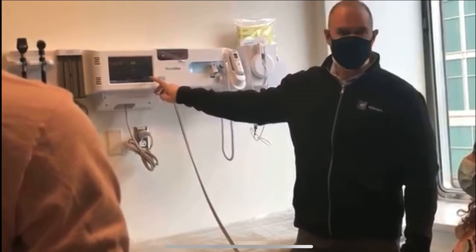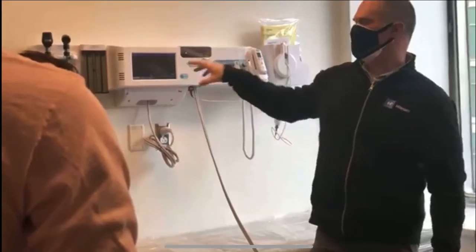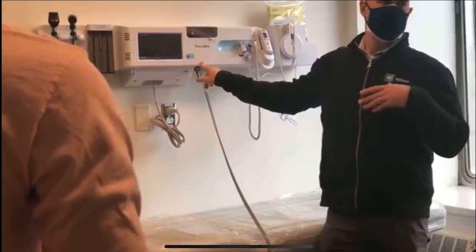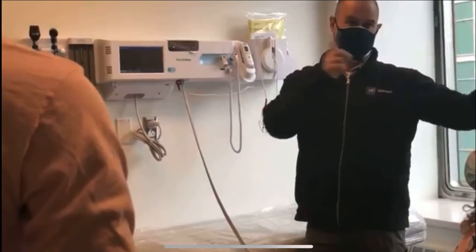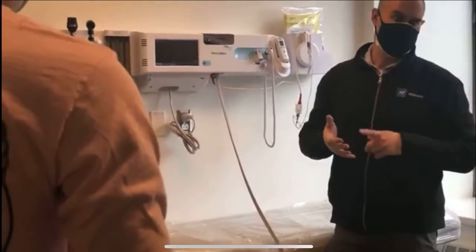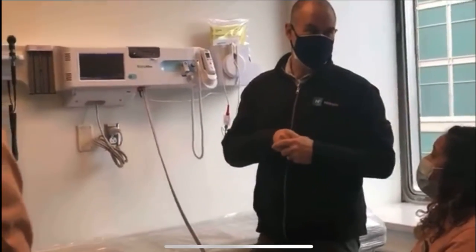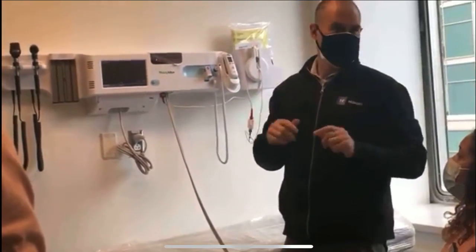I have the ability now to save these readings. Understand that this is only saved when I do that into the internal memory. There will down the line be a workflow for you to get this data into EPIC in your computer system, but at the start we're not there yet — it requires IT involvement and all that. For now, you're manually transcribing these readings into the record, but know that we will get there eventually.